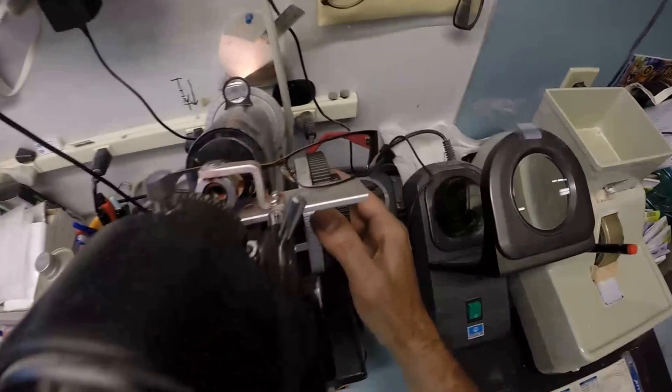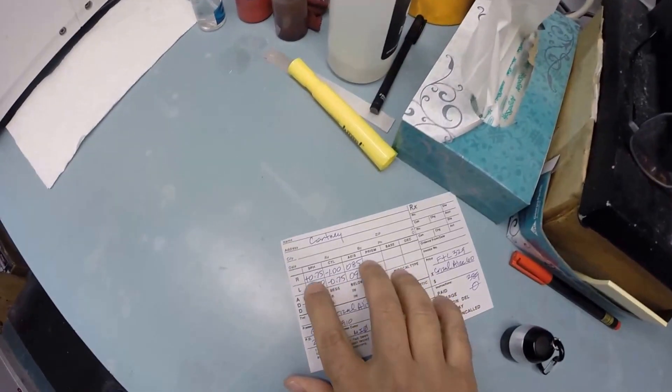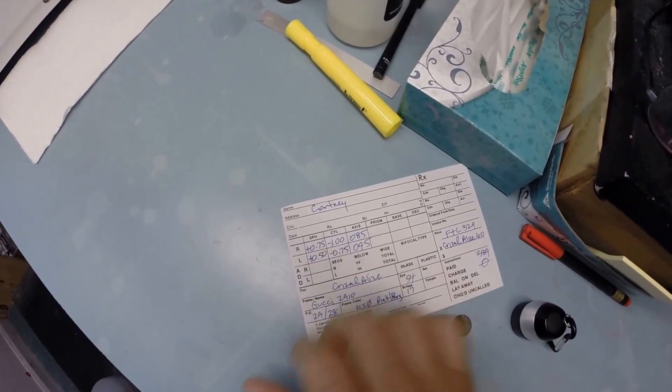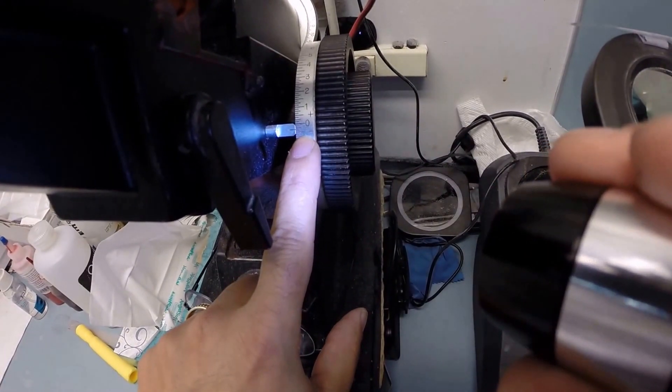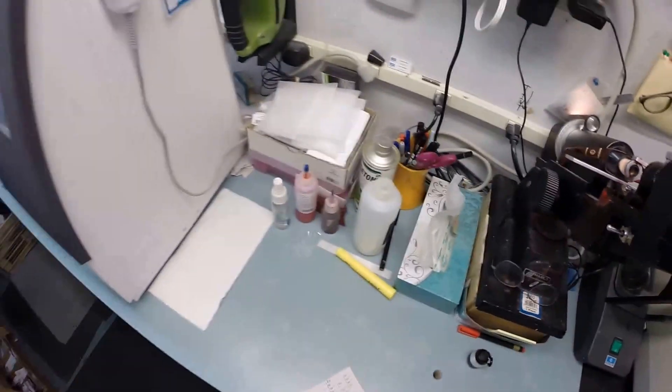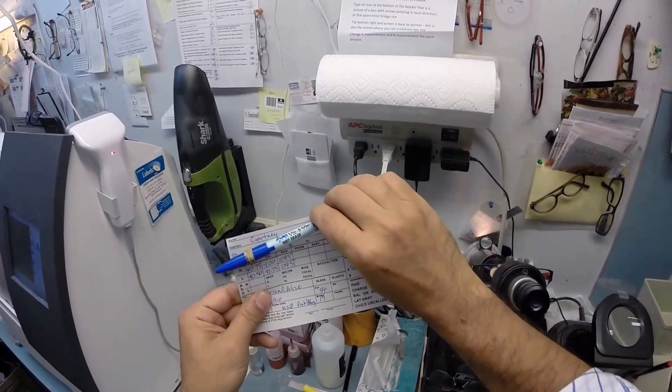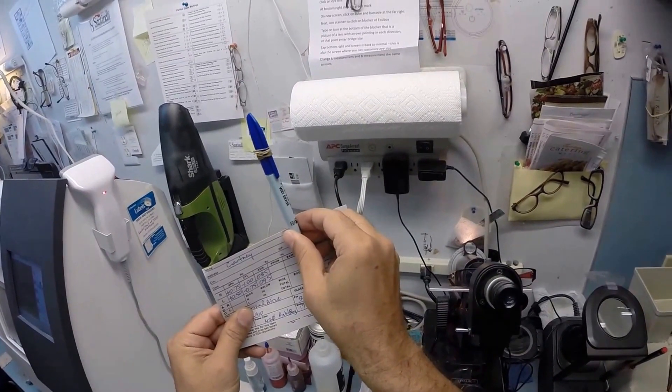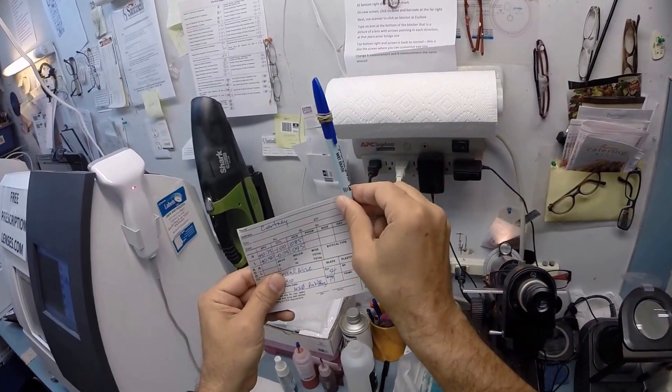But first, let's go ahead and check the second curve, the minus one, and we end up with a final value of minus a quarter. One tick mark past zero. Remember high school algebra where you subtract unlike signs? Don't worry, I've forgotten high school algebra too. Let's use today's terms. If you had 75 cents and someone borrowed a dollar from you, you would be 25 cents in the red. That's where we're at, 25 cents into the red. You were in the black three steps, drop down four steps into the red. So we're going to turn that fine-tune knob to 85. Now a straight line with a blue cap on my pen is at zero. We're going to turn that fine-tune knob past 90, actually 180 over here, 270 for those keeping score at home. We're going to turn that knob and stop just shy of 90 at 85.